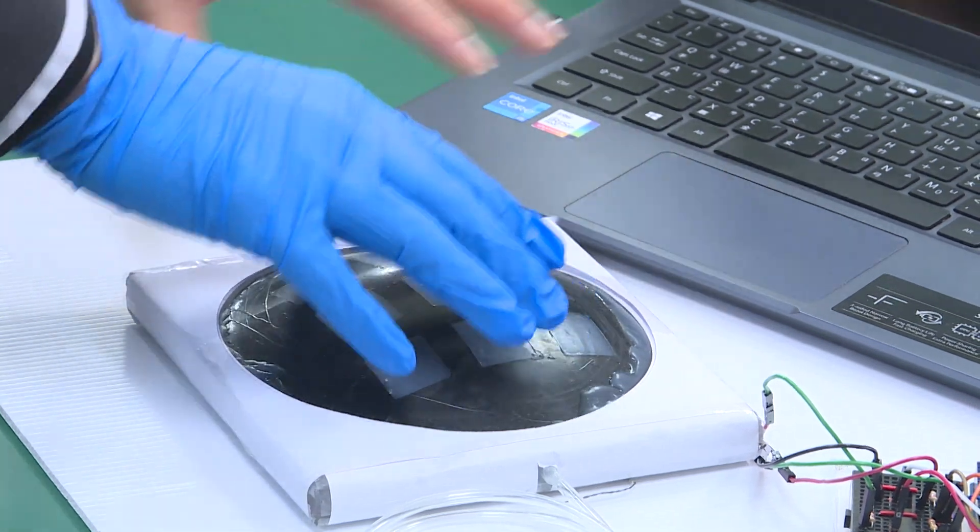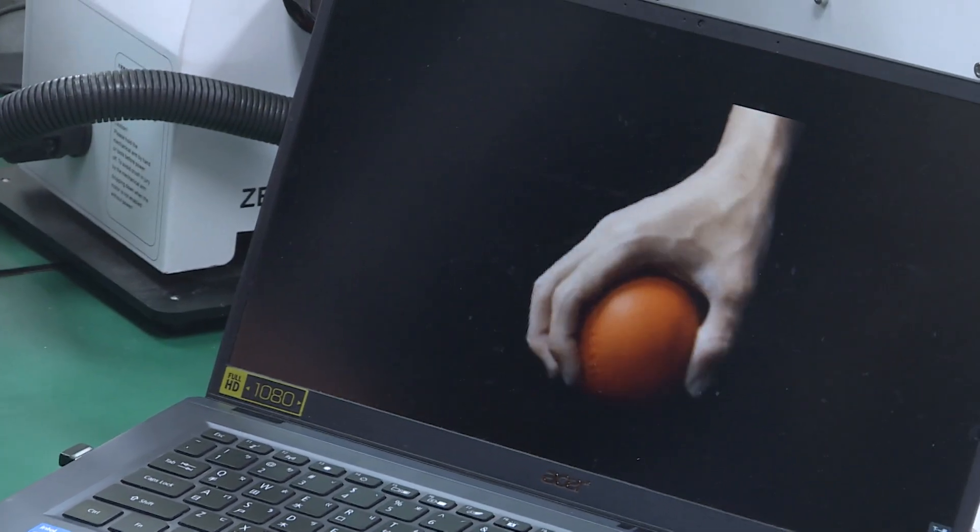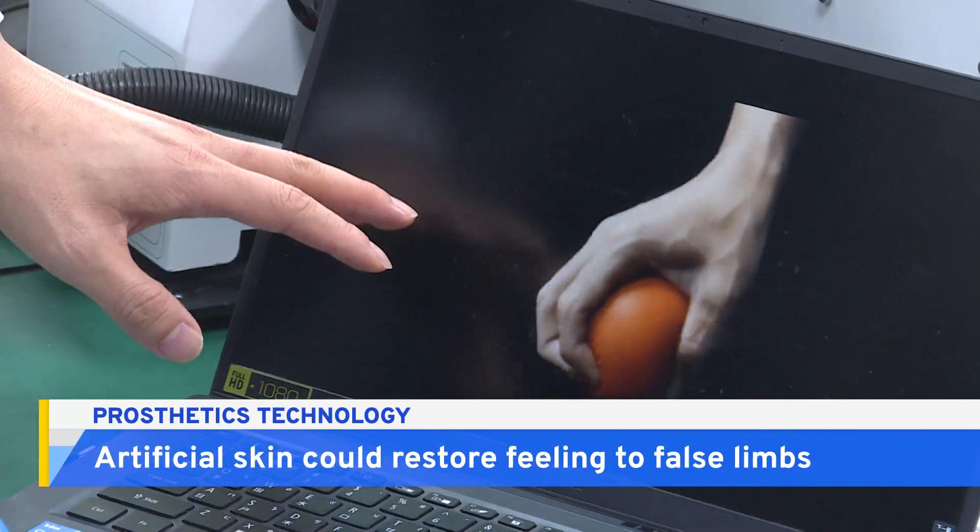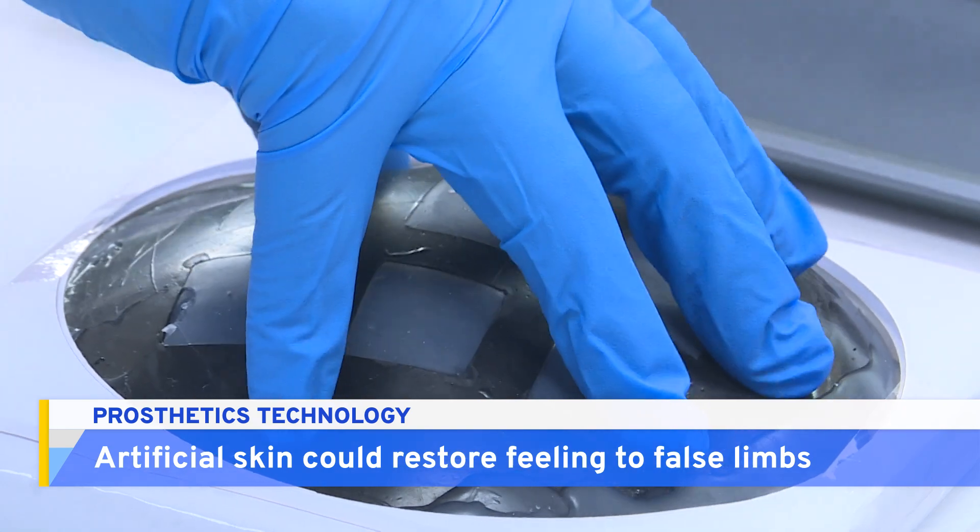Virtual reality you can really feel. This unassuming rubbery patch is the latest in prosthetic skin technology, from researchers at Taiwan's National Chung Hsing University.